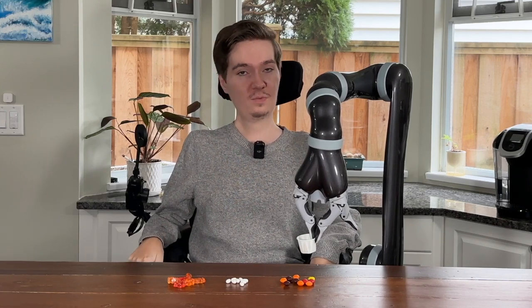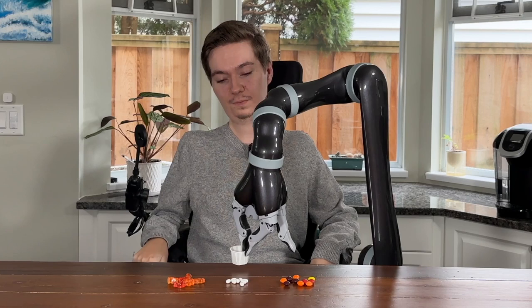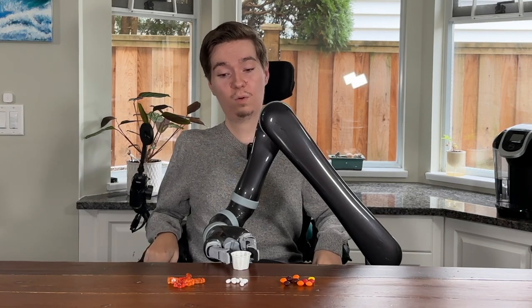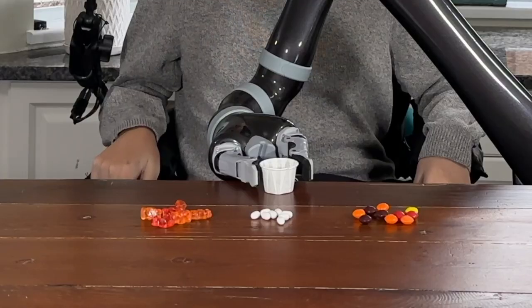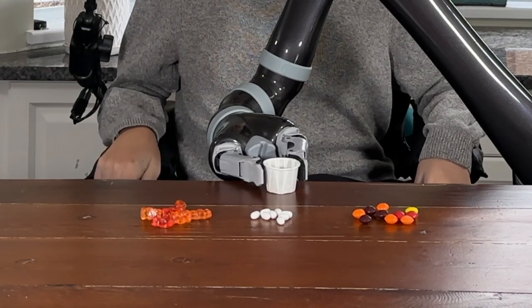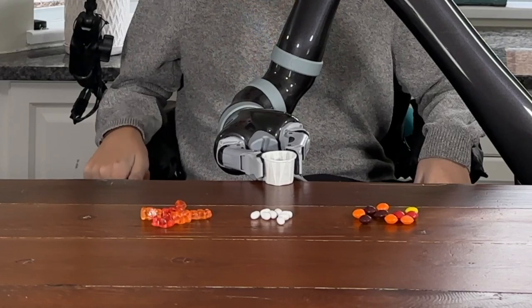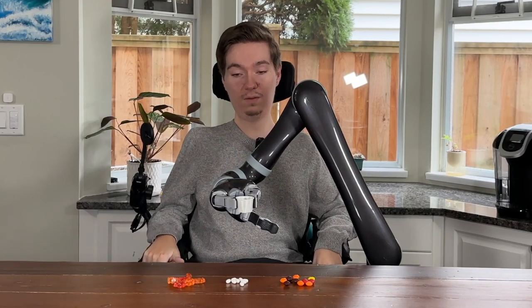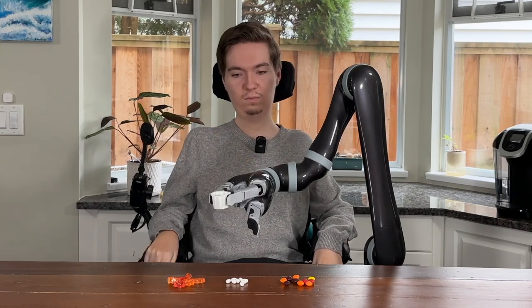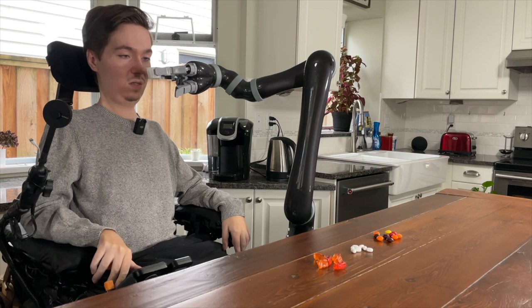What I would recommend, and what I do personally, is to grab this paper cup from the side, like a drinking cup. Because this is a paper cup, I don't want to crush it, which would prevent me from getting the medication out. If you're using something more solid, like a glass, you won't have to worry about crushing it. But because this is paper, I just want to be very careful and grab it only as firmly as I need to. Okay, so I've grabbed the cup and I've got a good grip on it. Now I'm going to bring it up to my mouth, like I would if I was drinking a cup of water.